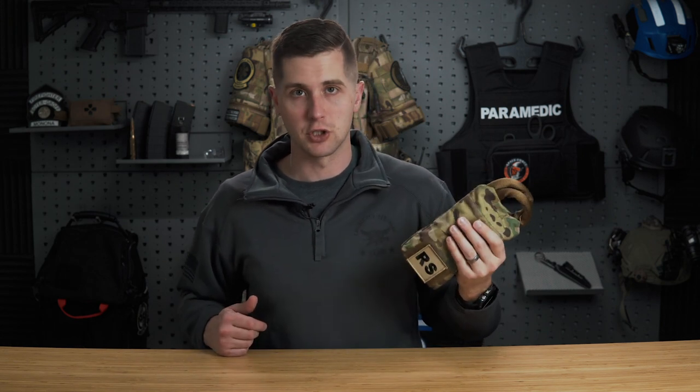Let's start with the outside, then we'll pull this device out and I'll show you some of the functionality. A lot of the different lifts and carries are not stuff I can just rattle off the top of my head because there are so many. At the end of this video, we'll put in a montage of different ways you can use this and demonstrate a lot of its functionality instead of just talking about it.